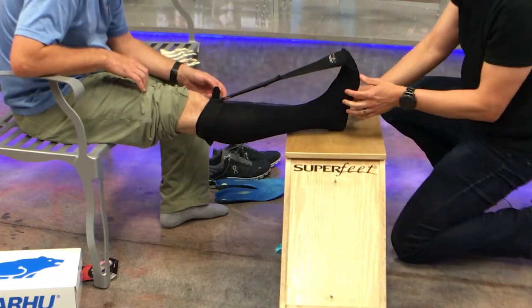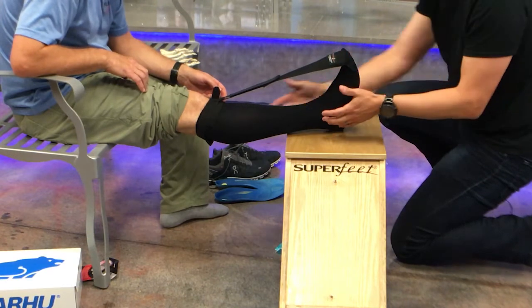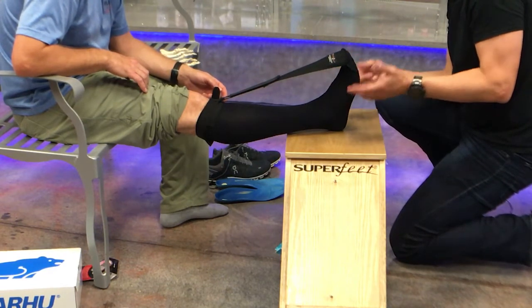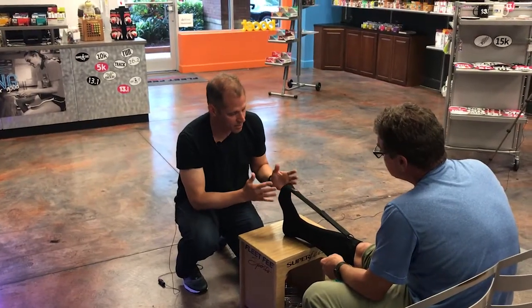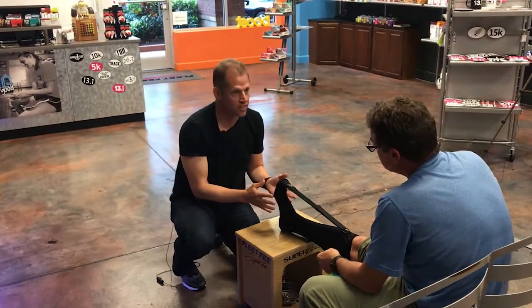Now relax your foot, and that's where you actually get the stretch. The sock is not actually stretching your calf. It's holding your toes in place as your foot falls forward. And that resistance is engaging what they call the windlass mechanism. It's basically just a fancy term for putting some tension on this plantar fascia. So you want to think of this not as a calf stretching product, but as if your foot is resting in a hammock.